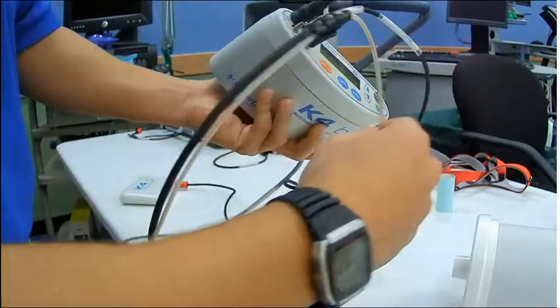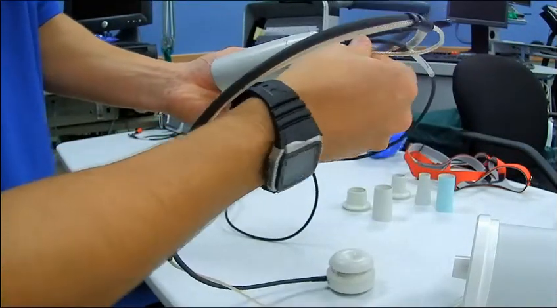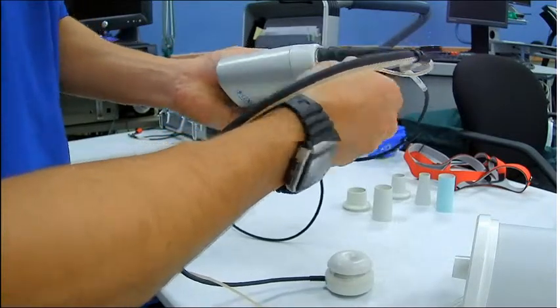Try not to twist it around too much when you're fiddling with it. And we'll take the gas sampling line, plug it right over that metal cylinder, and make sure it fits tightly.